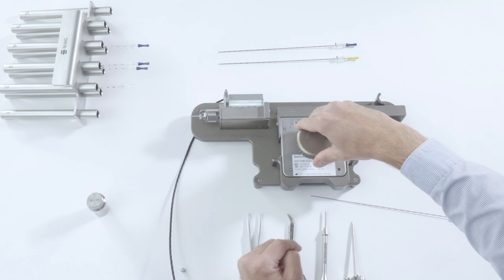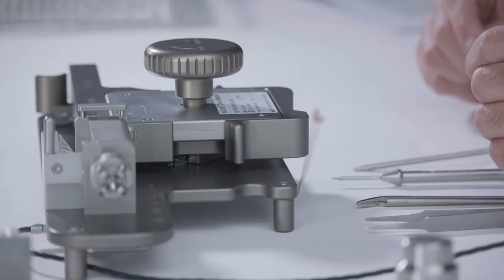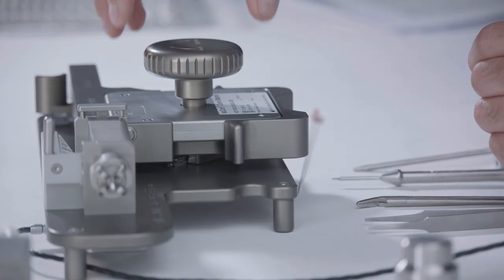Next, turn the knob another 3 to 4 degrees clockwise to ensure that the seed chain is fully retracted into the magazine.